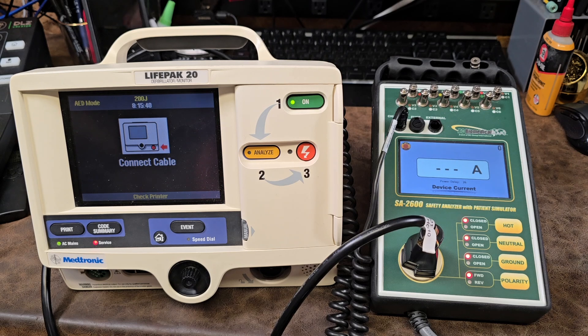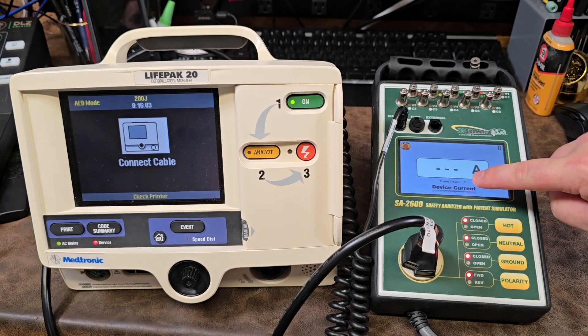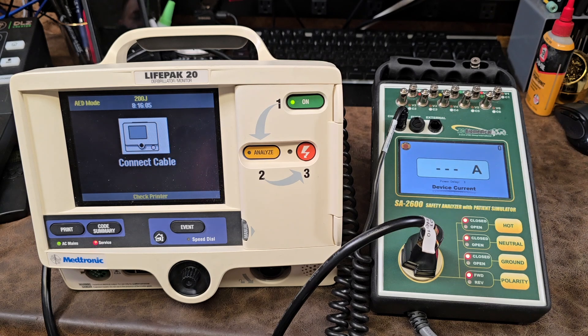It's going to measure device current. I have a timer built in that is customizable — my timer is set for 30 seconds. That's because after booting up a device, sometimes there are heating elements and other components that need to be activated. So that gives me time for those heating elements and also time to test motors. You can see it's counting down.